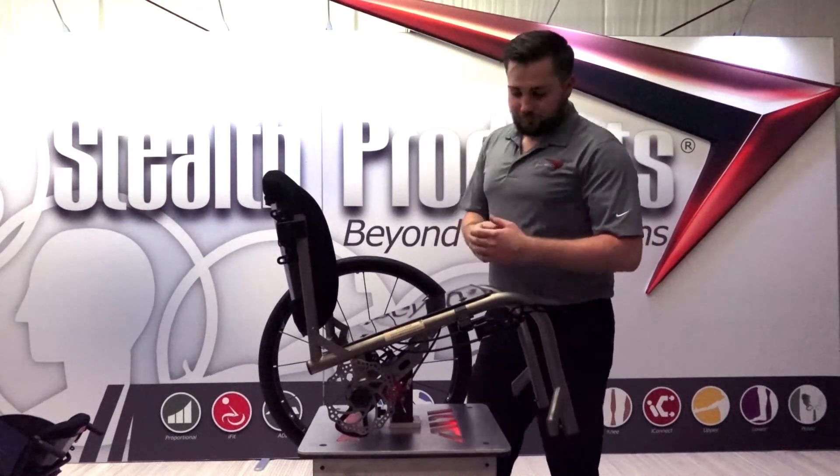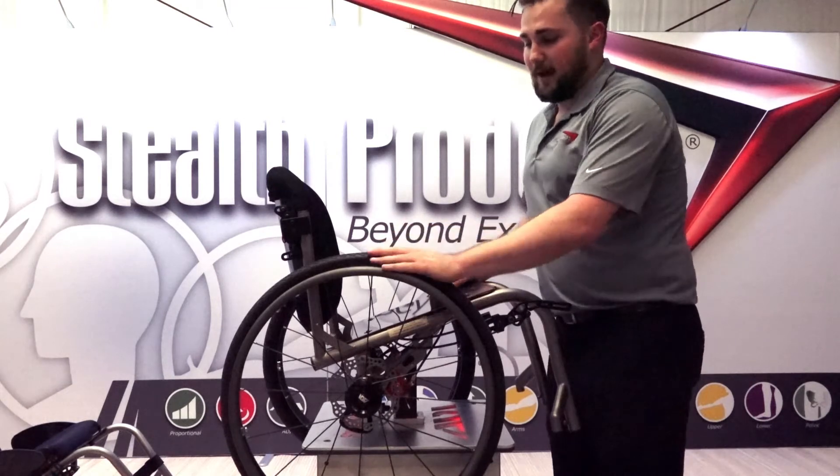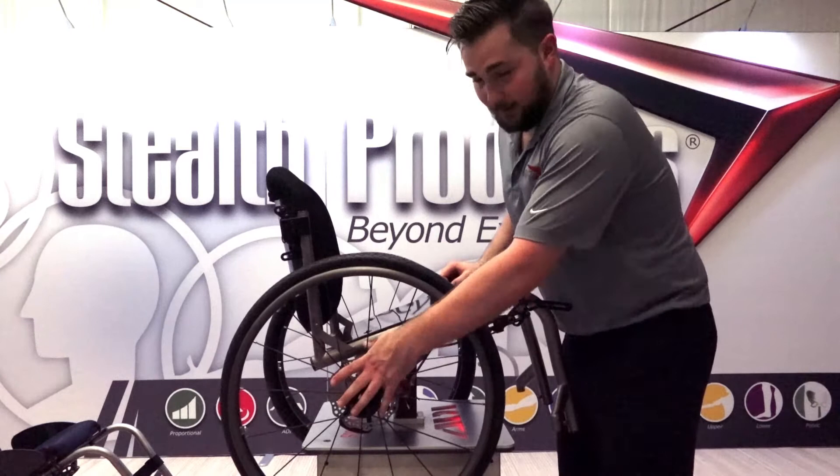The attendant can lock the chair, come around front, talk to the client, reposition the client, buckle the client in, or even feed the client. A huge advantage we gain from using a disc brake system is that we're not depending on tire condition or tire pressure for proper locking — the braking comes from the center of the wheel.